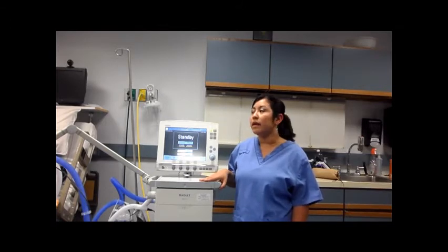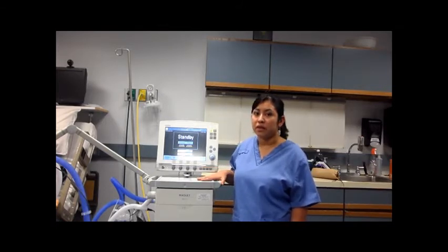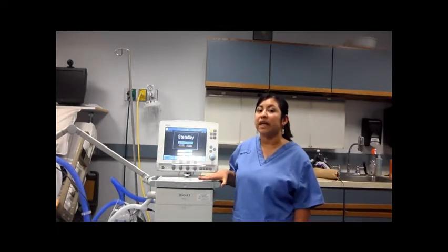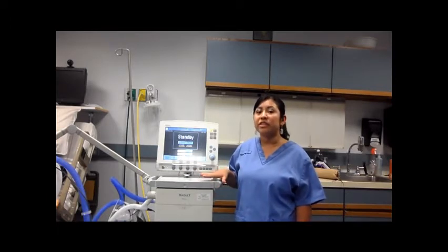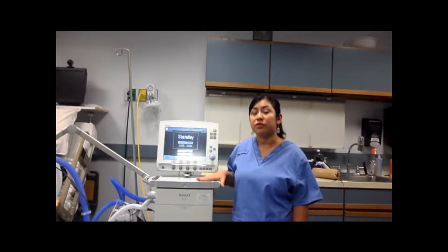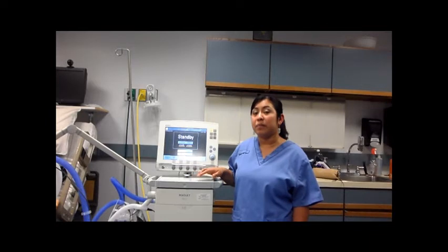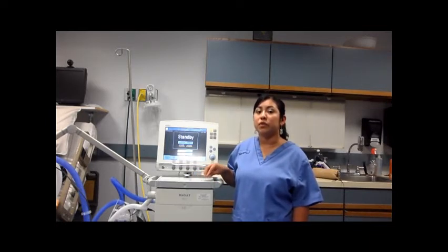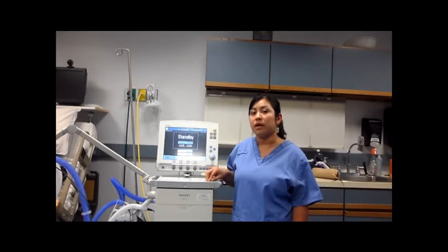In order to do it in the Servo I compared to the other ventilators, we have to set the trigger flow all the way down to negative 20. The patient needs to generate enough flow to reach this. So on your screen, you'll be able to see in the PEEP a negative number. So you add that PEEP to the negative 20 in order to get your NIF. And if it's less negative than negative 25, the patient is not generating that force.